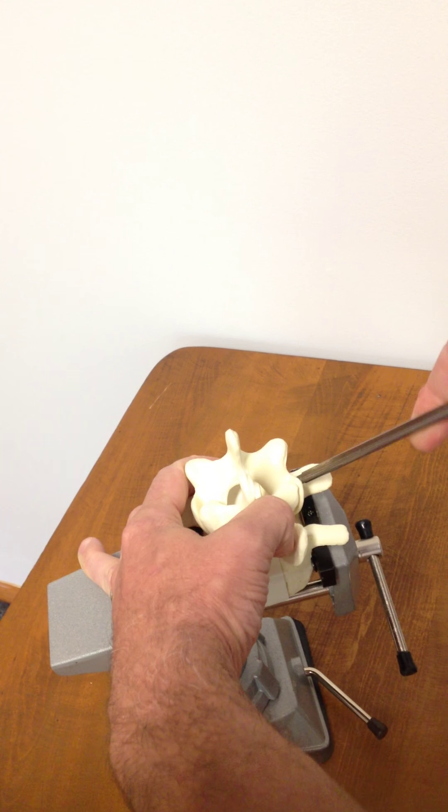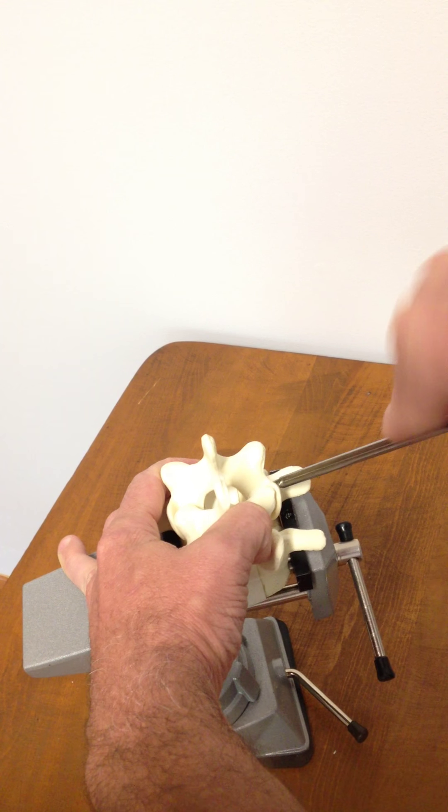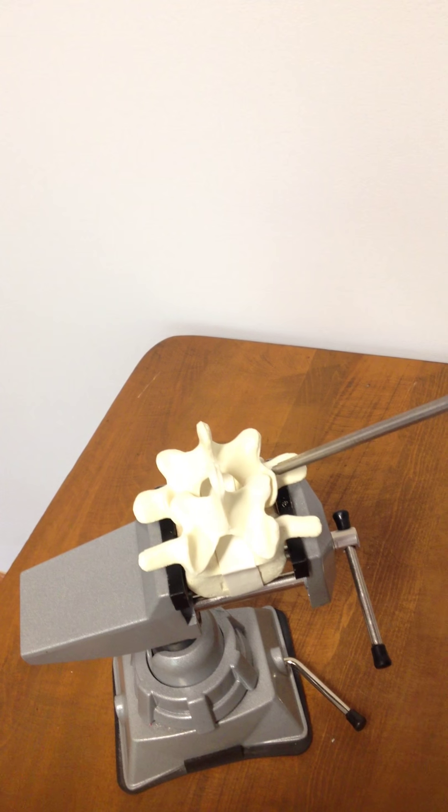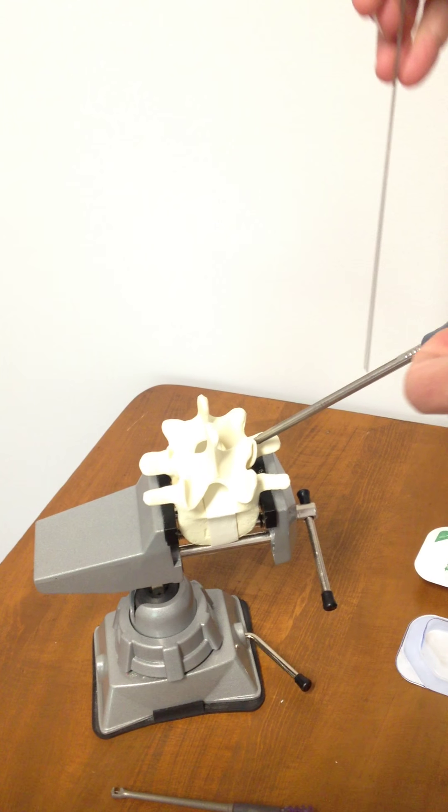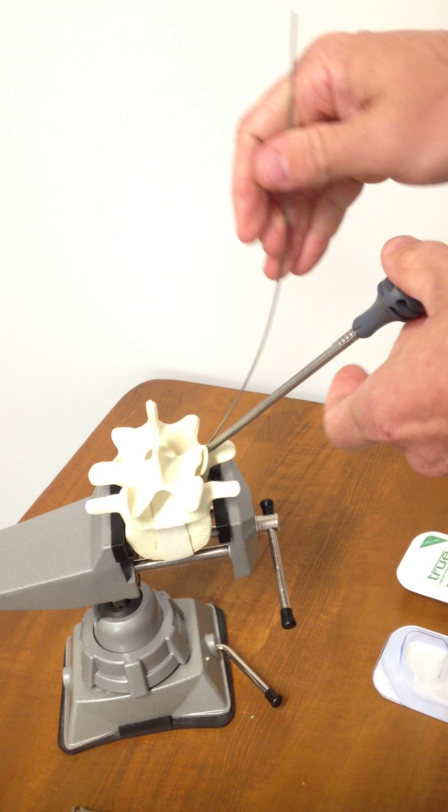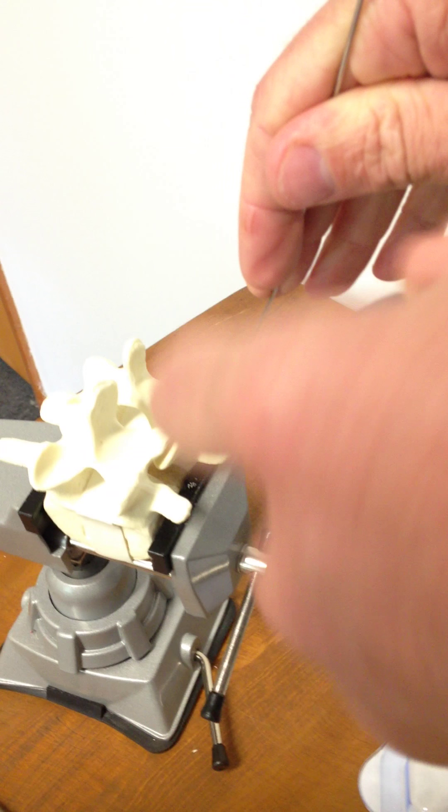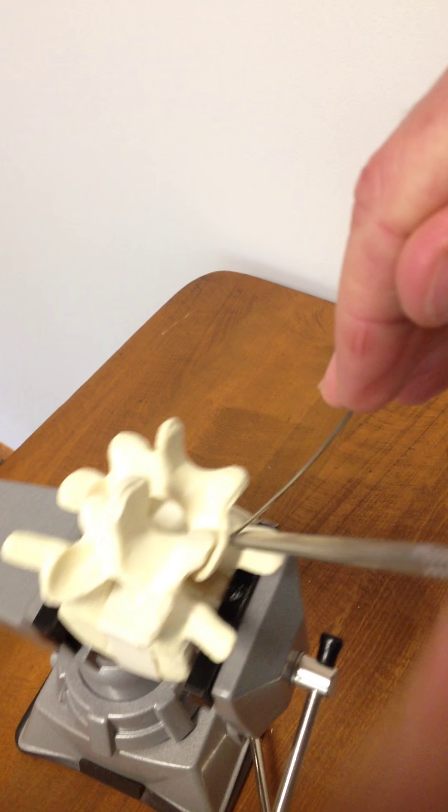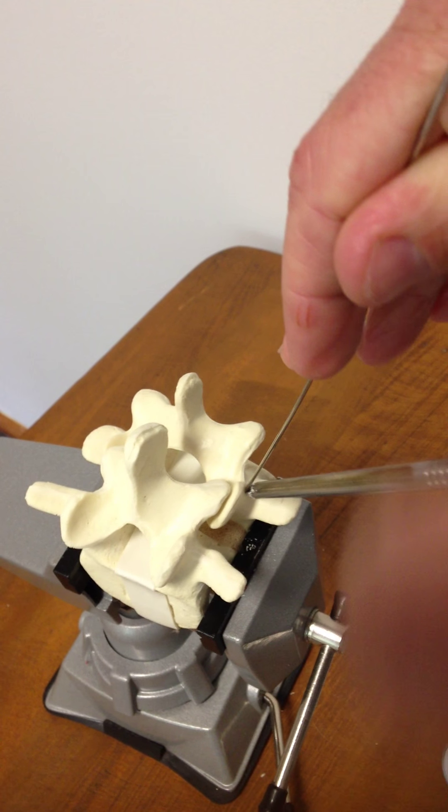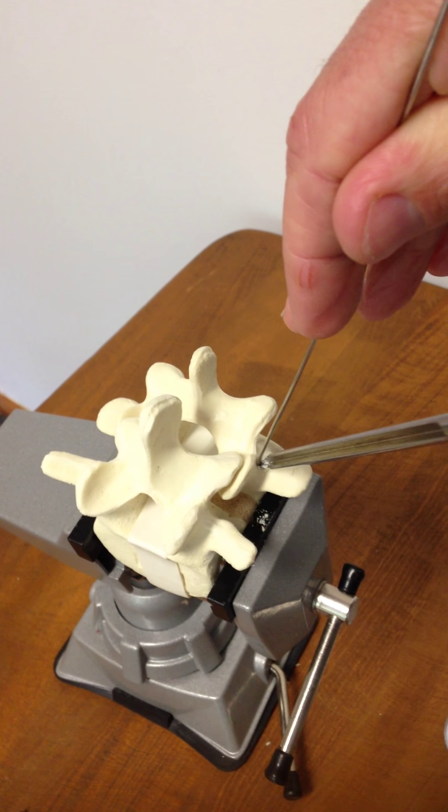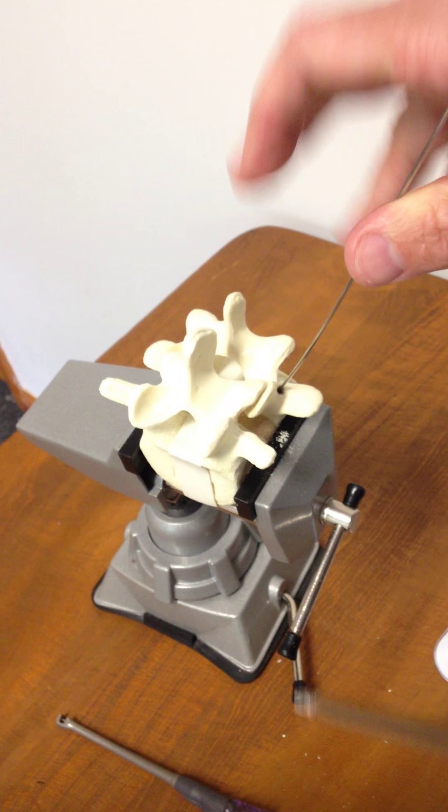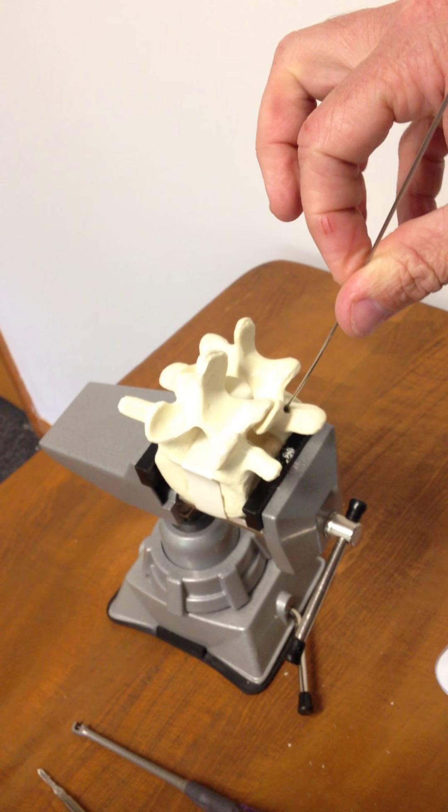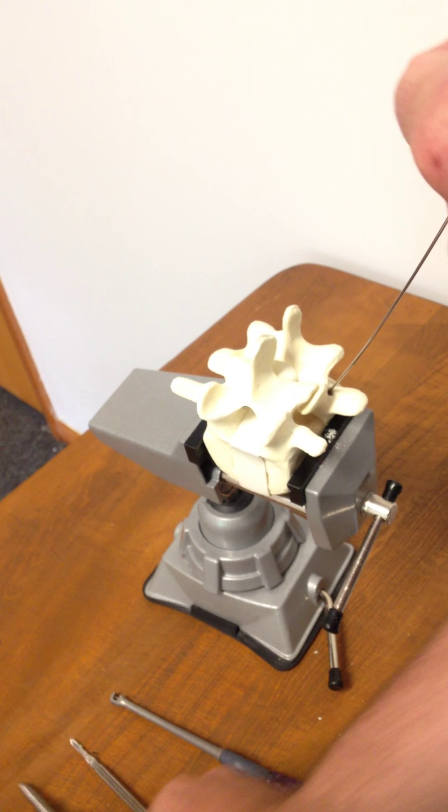Once you're in place with this instrument, the instrument actually has a groove in the side for the delivery of a guide wire. So guide wire delivery is very simple. It comes down in, and as you rotate back out and keep just light downward pressure, the guide wire slips right into place.